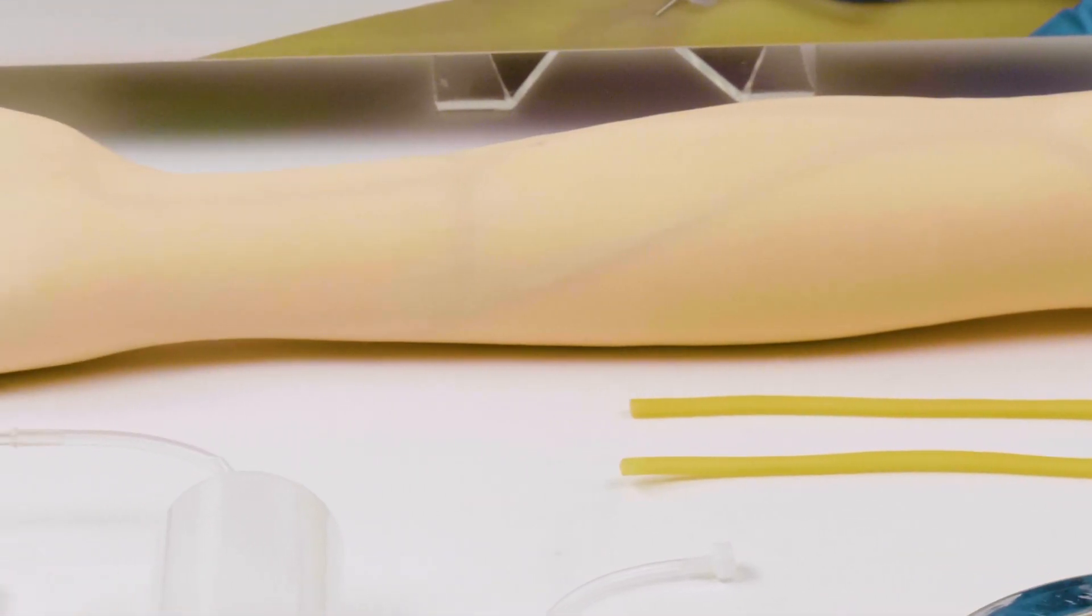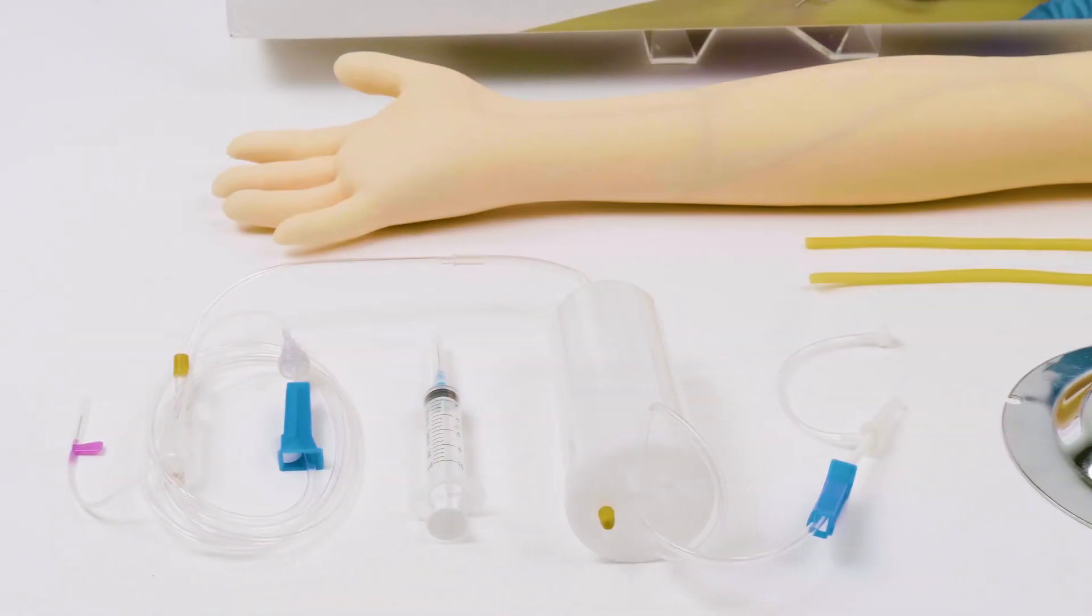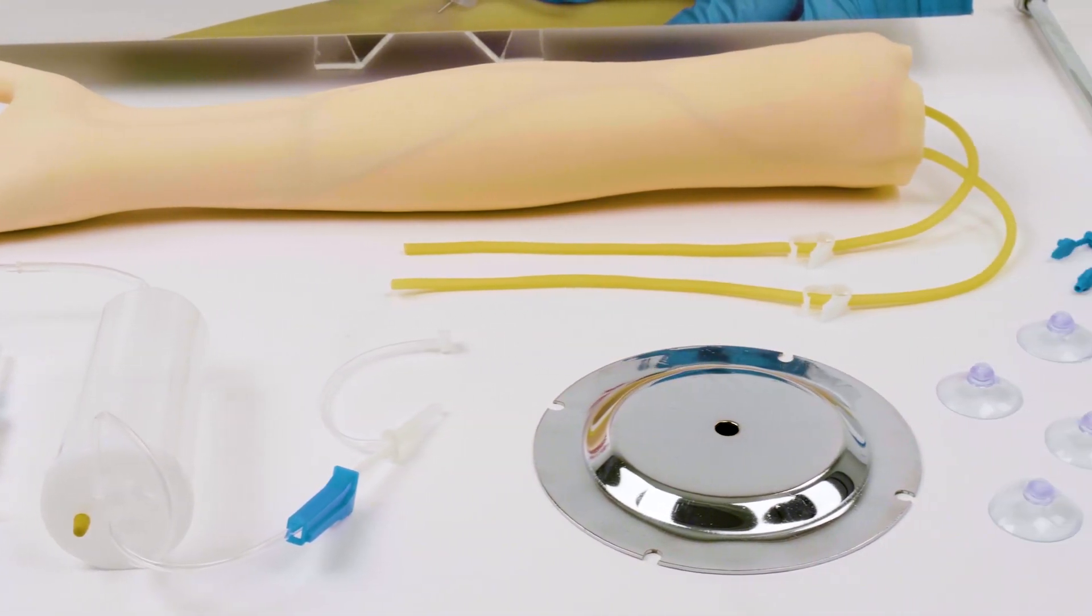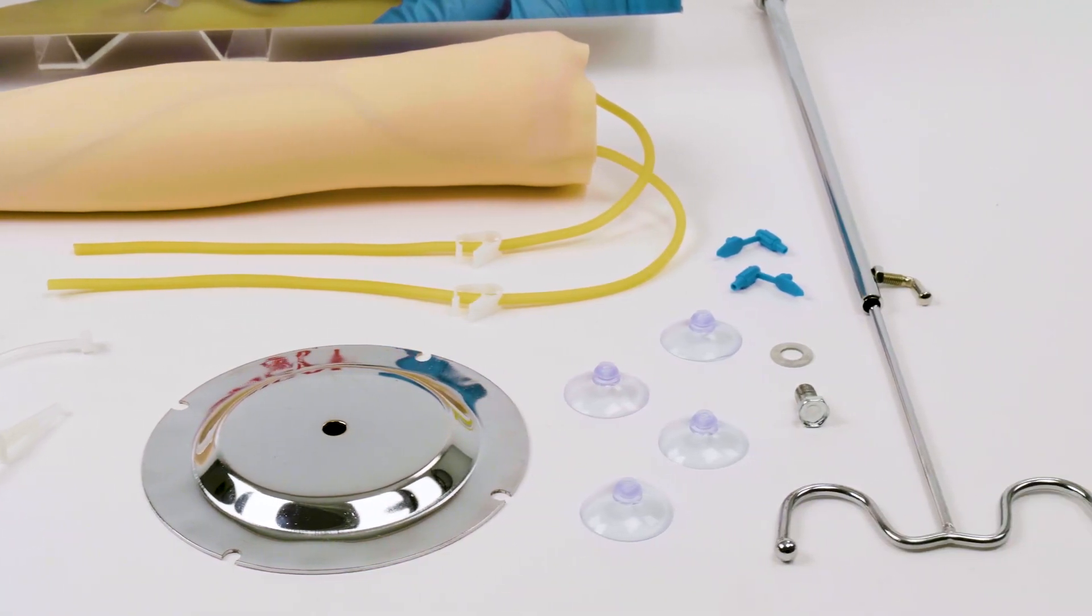Students can practice phlebotomy and IV procedures on the ventral arm as well as the dorsum of the hand. The arm can withstand hundreds of punctures as it reseals after every needle stick.